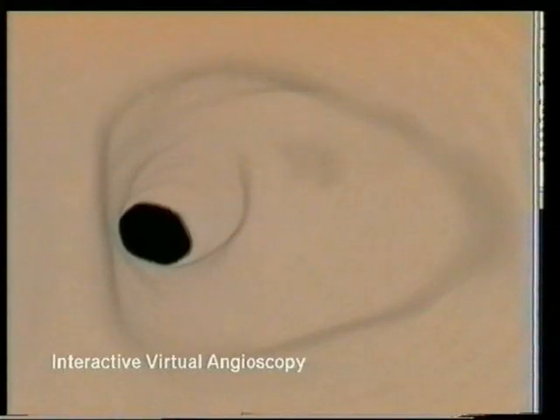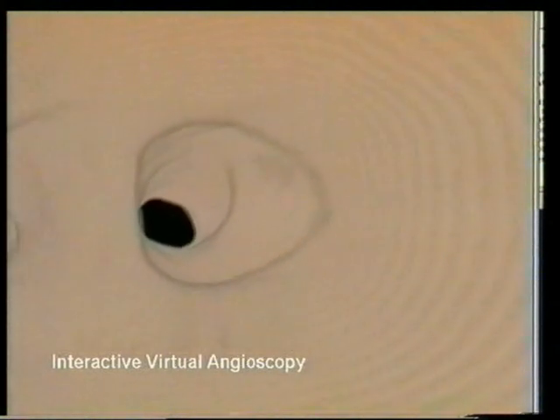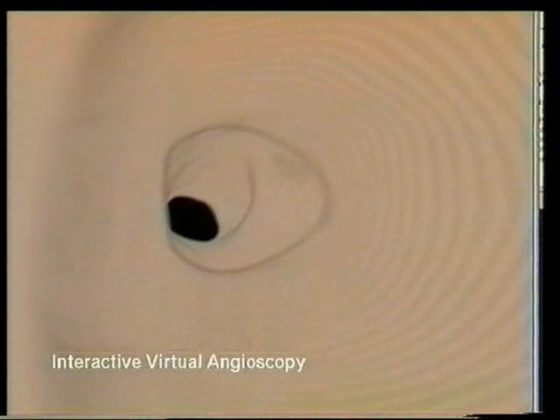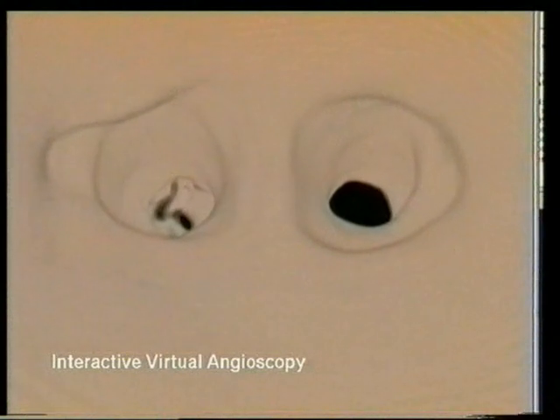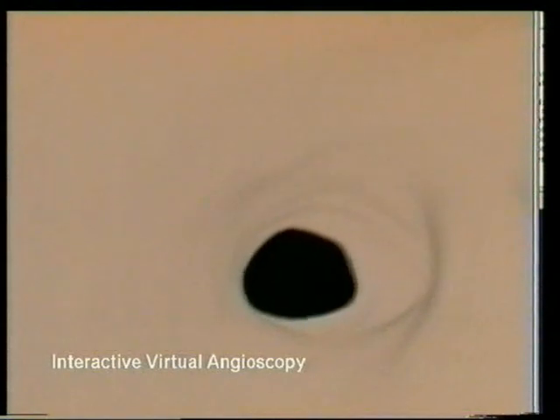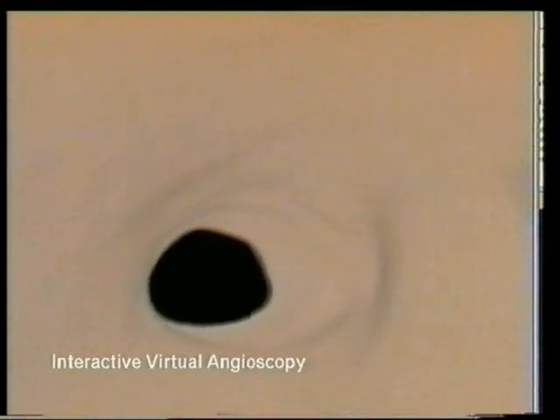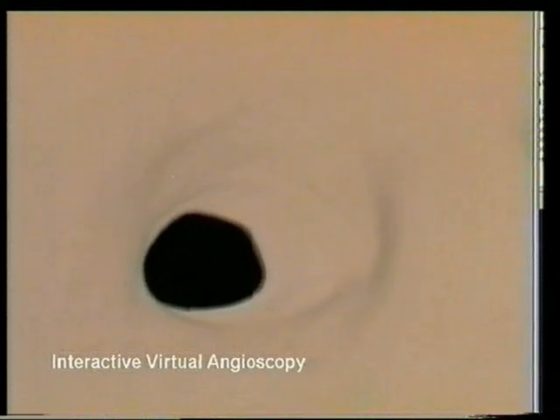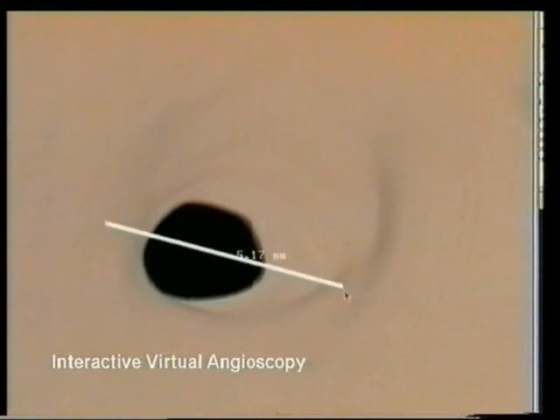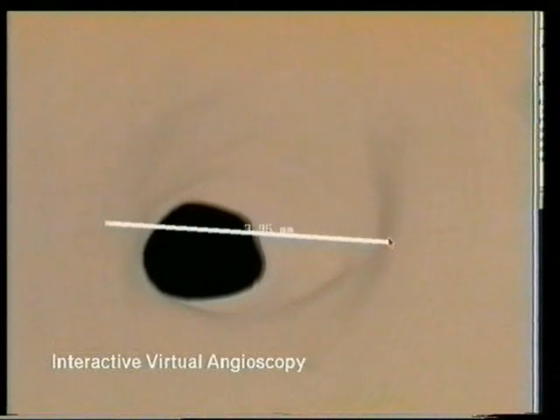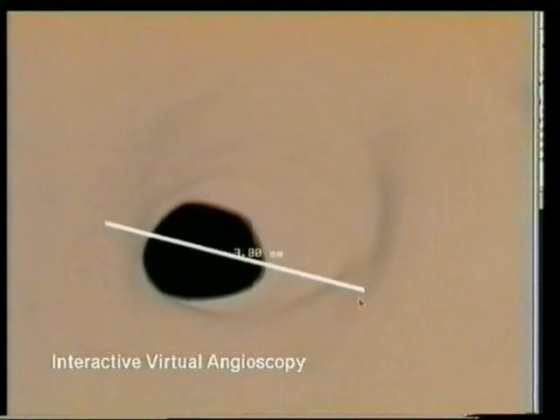Virtual angioscopy is a non-invasive medical procedure for exploring parts of the human vascular system. We have developed an experimental interactive tool that takes as input data acquired with standard medical imaging modalities and treats it as a virtual environment to be interactively inspected. The system supports real-time navigation with stereoscopic direct volume rendering and dynamic endoscopic camera control, interactive tissue classification, and point picking for morphological feature measurement. This short video illustrates our approach with real-time sequences showing the examination of a human carotid artery.